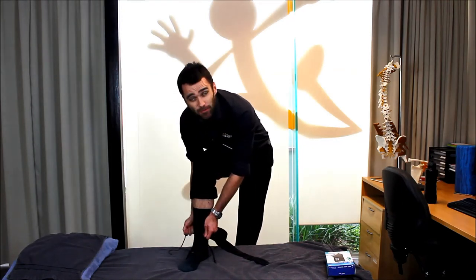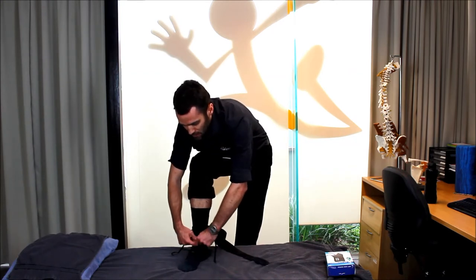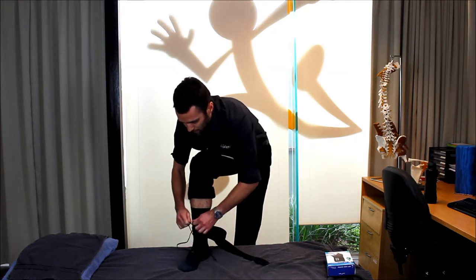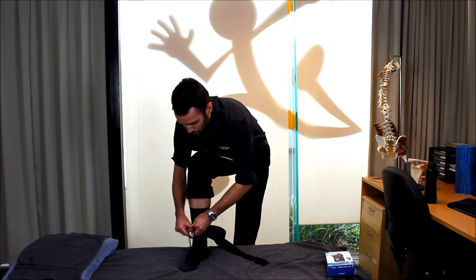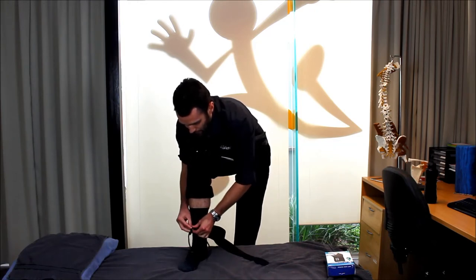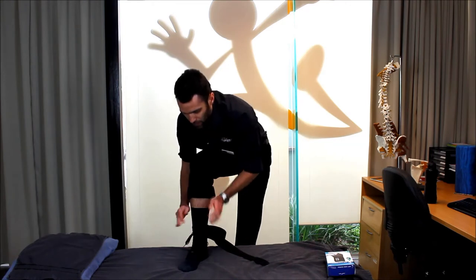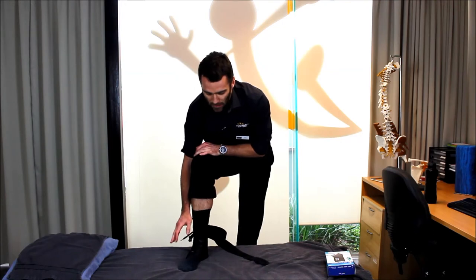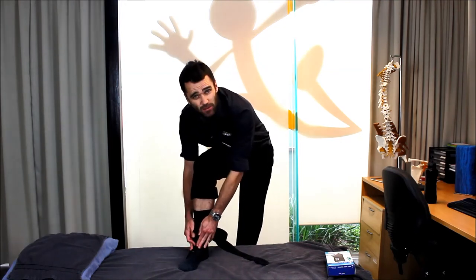I'm laced up. I'm going to start again at the bottom and tighten everything up one more time just to make sure I've got a nice snug fit. Now, don't worry too much about the loose ends of the lace — we can take care of them in a moment, as you'll see shortly. Some key points I want you to recognize: as I've mentioned, the seams are about two centimeters apart.